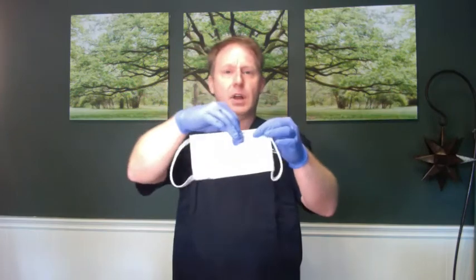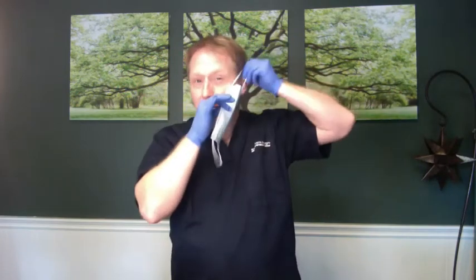Find that metal rod — you can feel it. Take the loop, put it over one ear and then the other, and position it. It wants to be over the nose and the mouth. You're going to have gaps, so we use the metal bar to try to pull it in. The more that you seal this, the less likely you'll have fogging — especially if you wear glasses or goggles, since the eyes are mucous membranes and an entry point for some viruses.